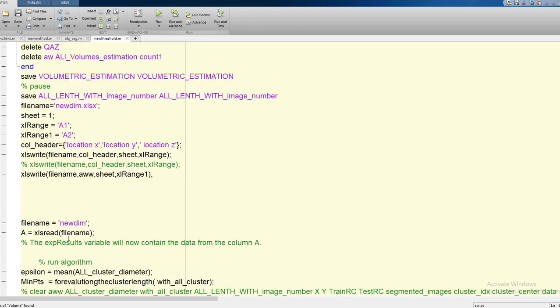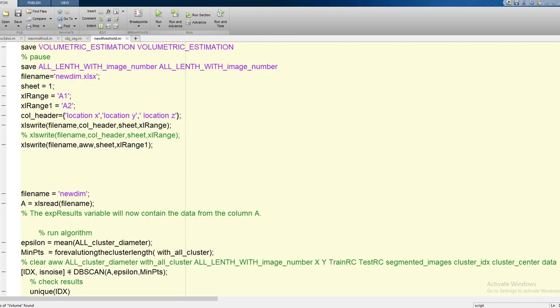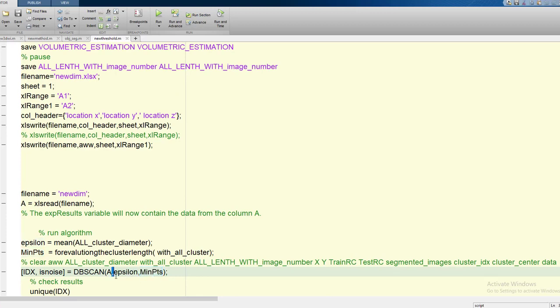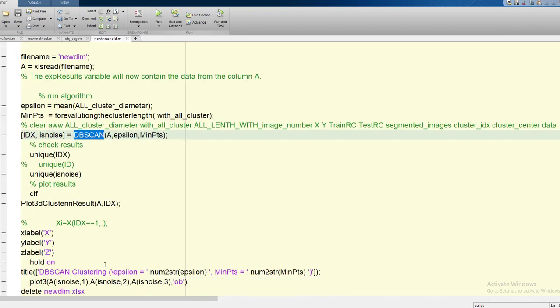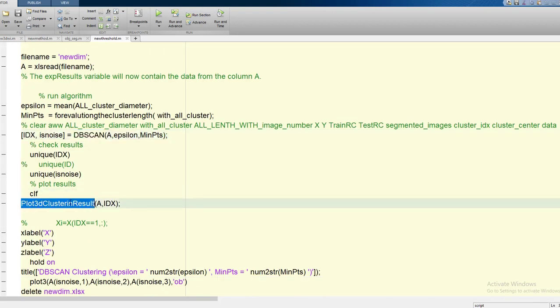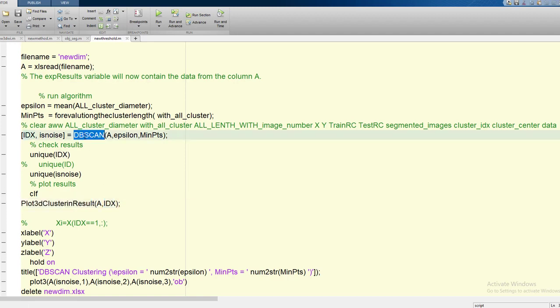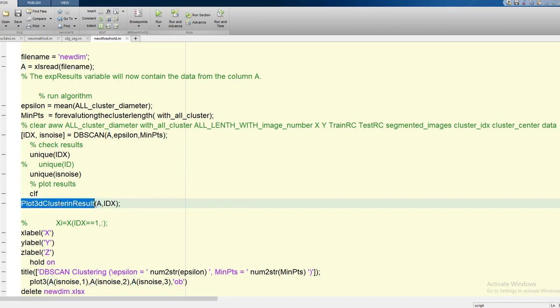After doing the volumetric measurement, it's time to filter some noise. For noise filtering, I use DB scan here which gives me the thresholding point. DB scan will filter all the noise and I'll be getting only the nodule part. Then I plot 3D clustering result which contains idx, an output of DB scan. Finally with the help of this 3D clustering result I would be able to measure and diagnose the cancerous nodule. So let me run this program and you will see the final outcome.